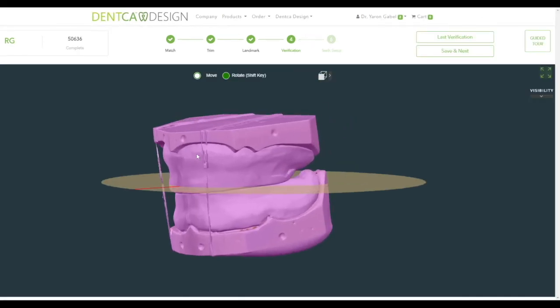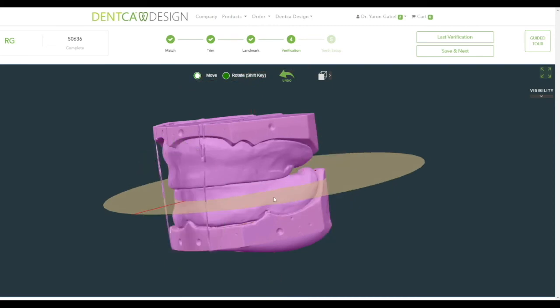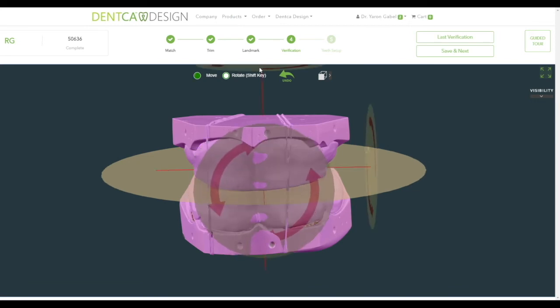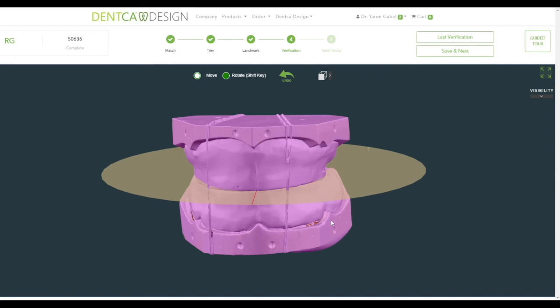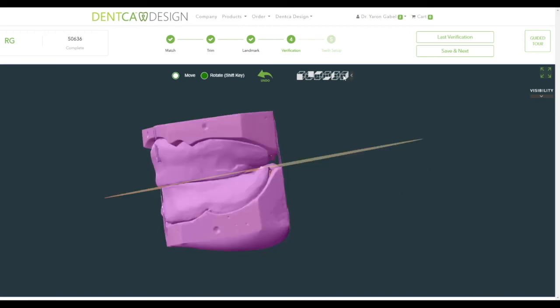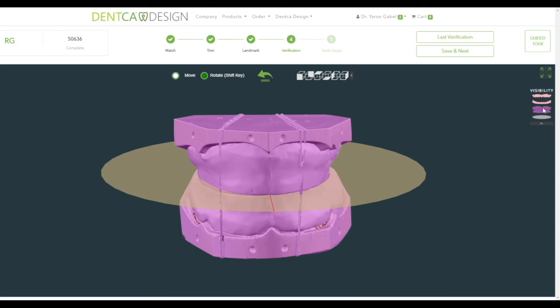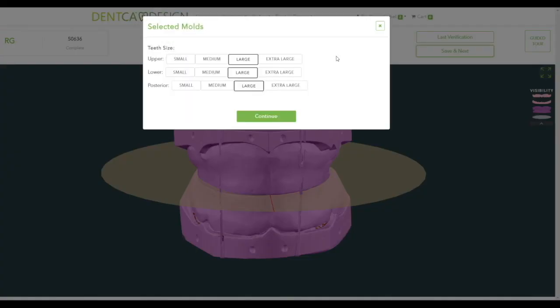During the occlusal plane verification phase, you may move the occlusal plane by left-clicking on it, or rotate and tilt as necessary, by either holding the Shift button or alternating the Move and Rotate functions on the top of the screen. You may move the models by holding the right-click button on the mouse. You can also undo changes by clicking the Undo button. If the impression type is a wax rim, this is the place to align the occlusal plane accordingly. There are different toggle view modes — you can hide certain parts of the denture using the Visibility menu on the right, or see different views with the menu on top. Once finished, click Save and Next. It will ask you to confirm the teeth size, and then you will be sent to the Teeth Setup screen.